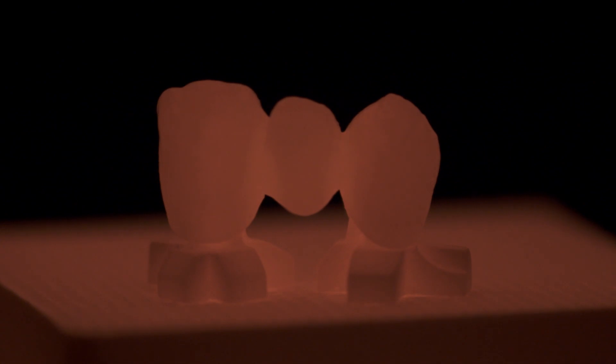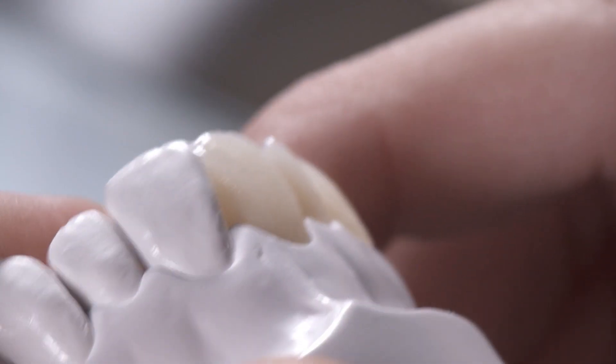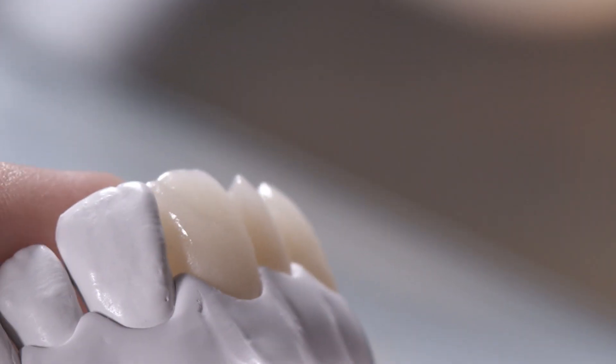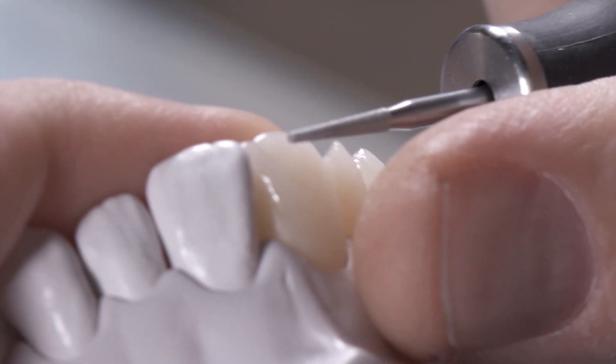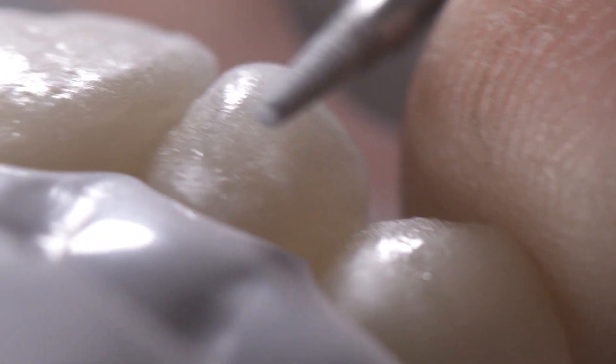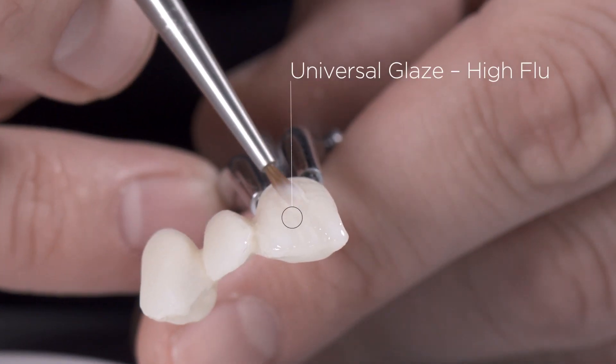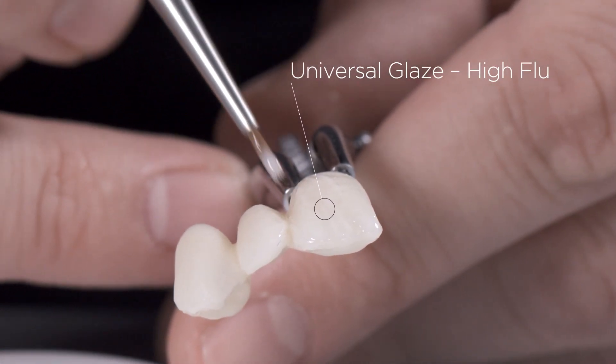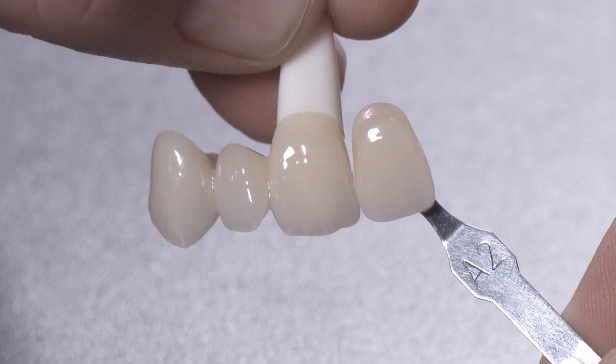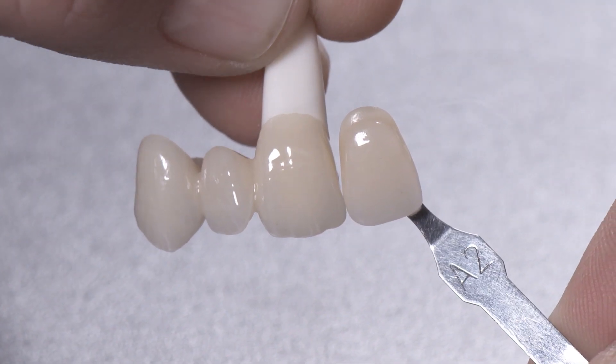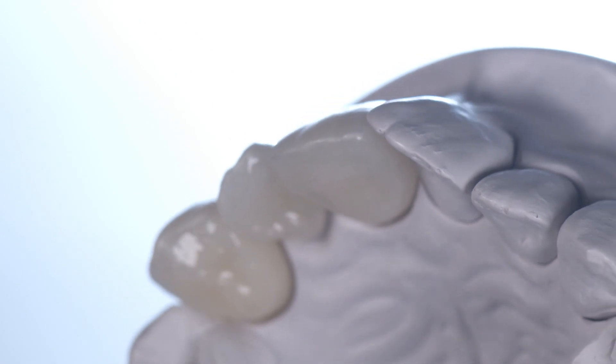After ceramic firing, finish the shape and surface texture. Finalization in this case requires simply a glaze, dispensing with stains altogether. The result? The desired shade color has been matched very closely and the restoration looks alive with only one incisal and glaze.